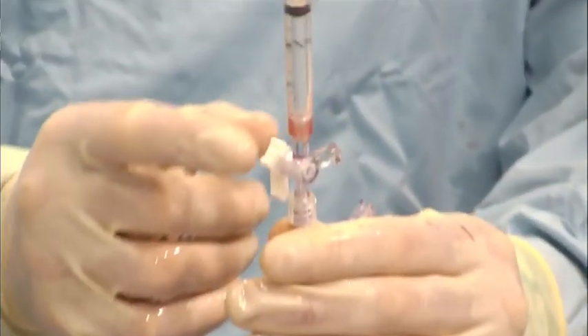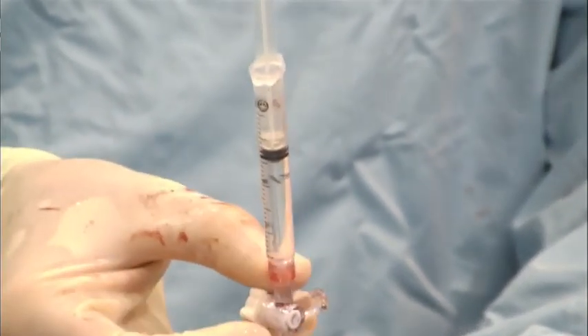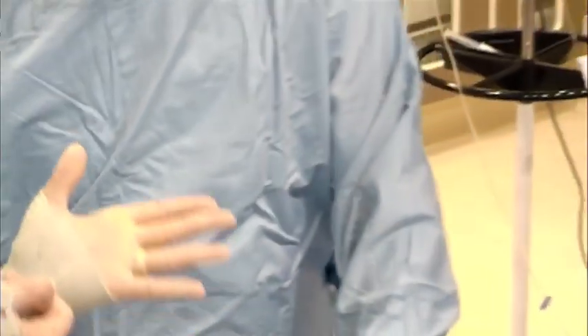So we're going to get everything set up. And it'll drop 0.3. Now we just turn it off and load it. What we do now is leave it on while we bring it in, and it actually will entrain about another 0.1 or 0.2. That's good.